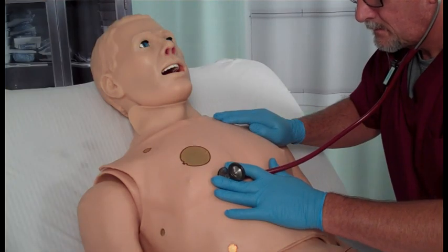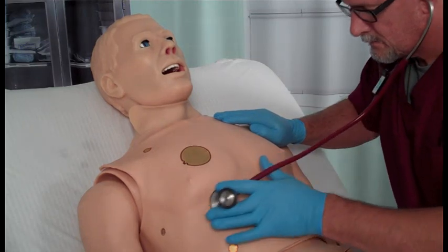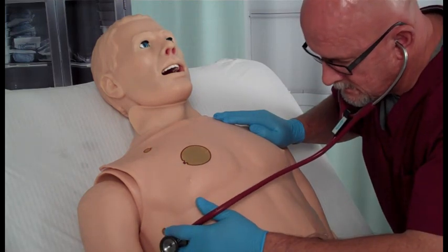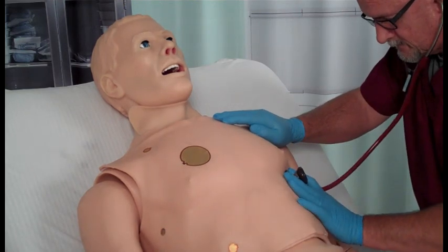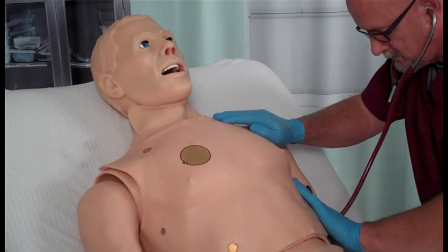He has multiple upper airway sounds synchronized with his breathing, including normal, inspiratory and expiratory stridor, and stridor biphasic. Hal is supplied with fixed upper and lower dentures, and the tongue may be moved gently from side to side. Hal has independent right or left lung sounds, which are synchronized with selectable breathing patterns such as Kussmaul's, Cheyne-Stokes, Biot's, apneustic, apnea, and normal. Available lung sounds include normal, wheezing, inspiratory squeaks, crackles, and rhonchi.